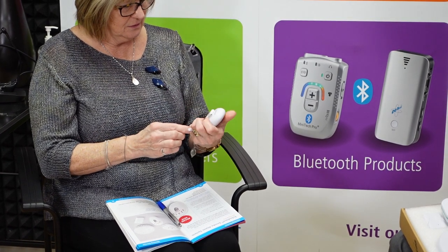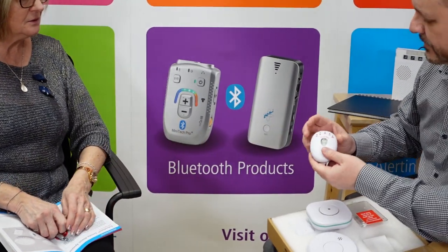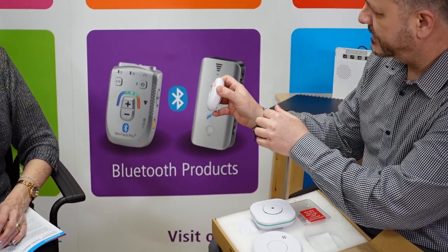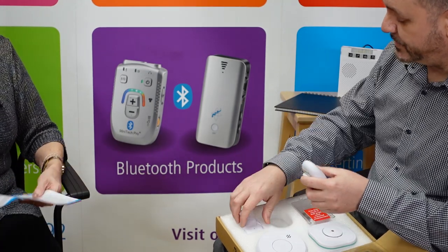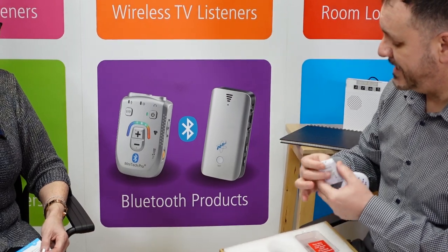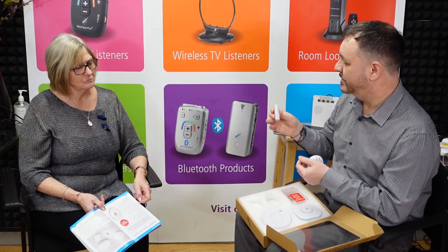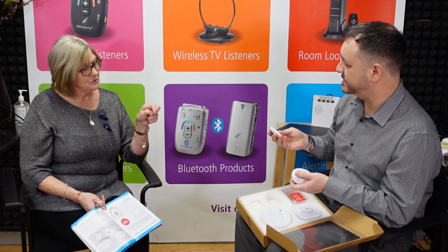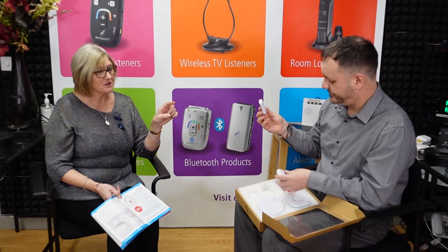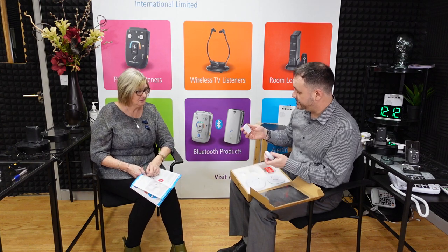It's compact, isn't it? Absolutely — it's quite nice because I've got arthritis and it's easy to hold, not uncomfortable to stretch my fingers. What are all these icons for? You've got the different alert systems shown there. The first alert is for the bell push, which is included in the unit. The bell push also has a lanyard attachment option — we don't include the lanyard — so it could be used as a panic alarm. Is that an additional extra or does it all come together? It's all in the unit.